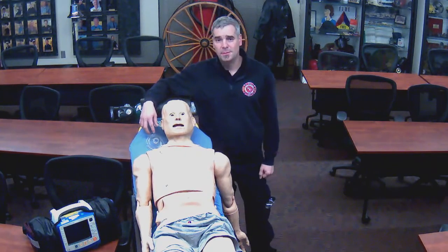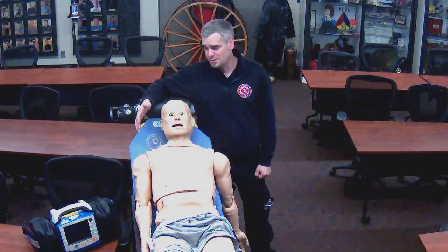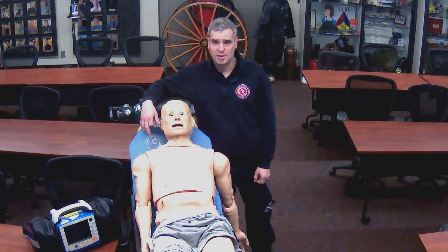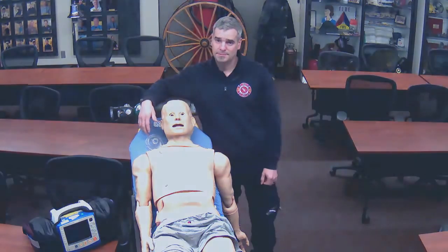Today we're going to cover some intermediate and advanced functions of our Zoll X series monitor. Today we're going to cover vitals uploads to ImageTrend. We're going to cover 12-lead transmissions to the receiving hospitals, ETCO2 monitoring, pacing, and synchronized cardioversion. We'll get started with vitals uploads.